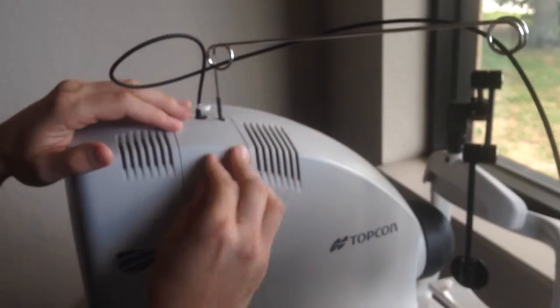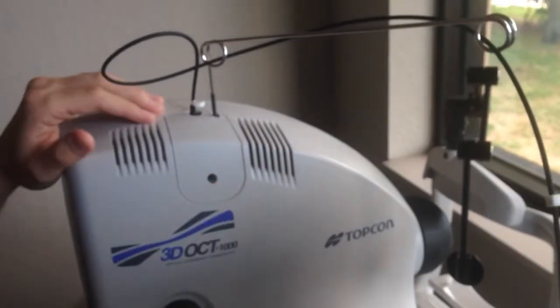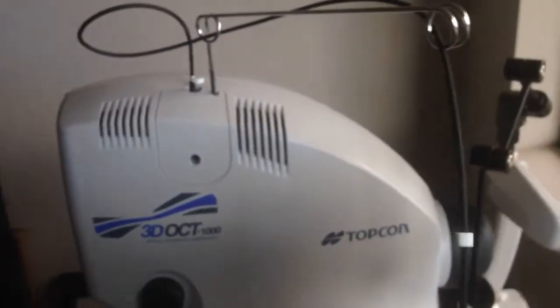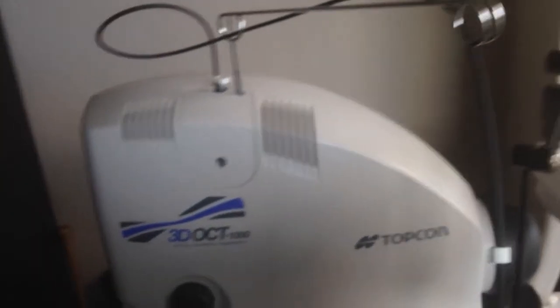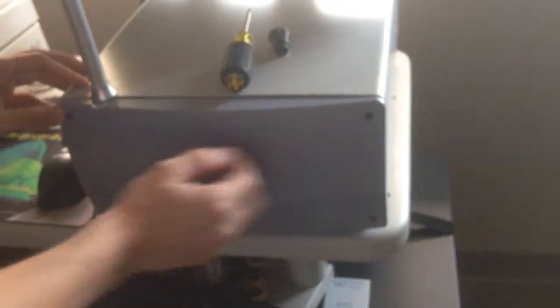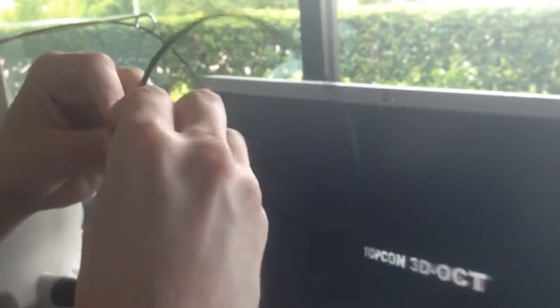I'm just going to reassemble this. And then you're going to put this front cover back on. Screw in the four screws. Attach this rubber grommet. And you're all done.